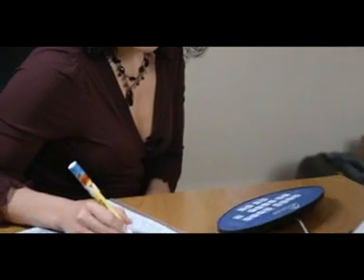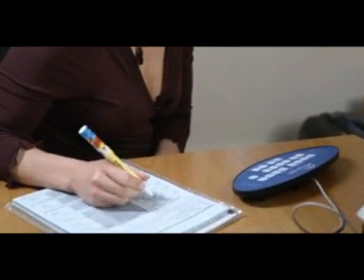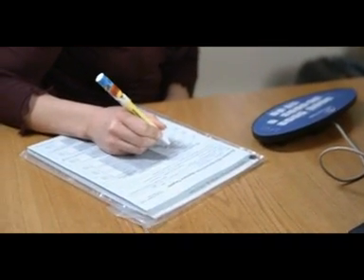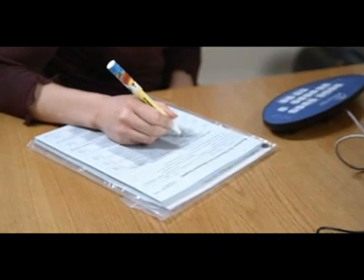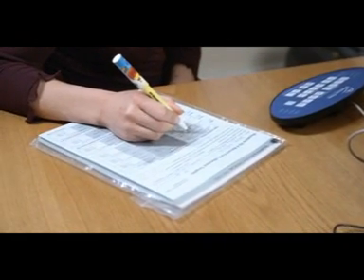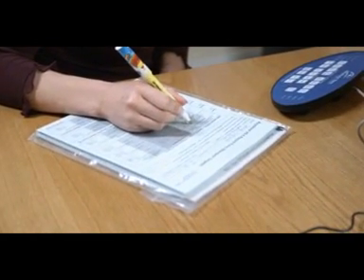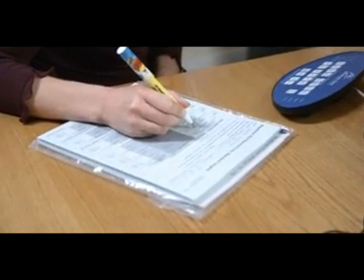If reading glasses are worn, they should only be put on for VDU and near vision tests. Keep any bifocals or multifocals on at all times and look through the appropriate part of the lens.